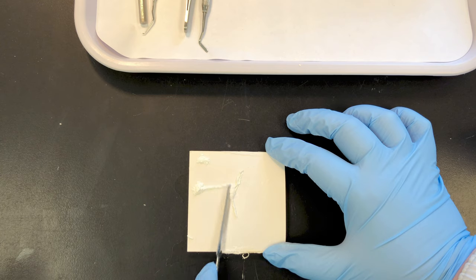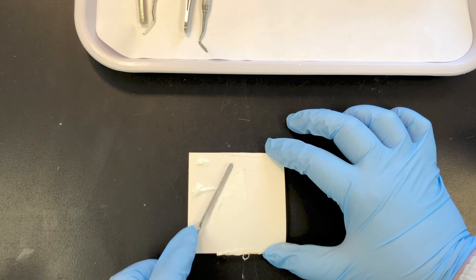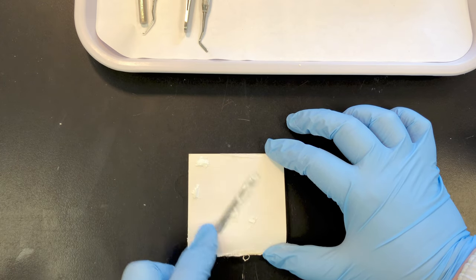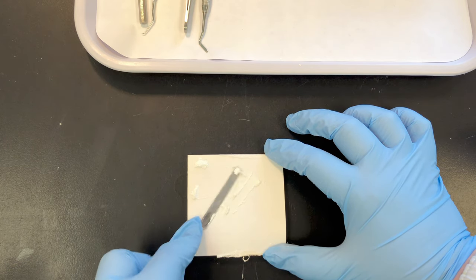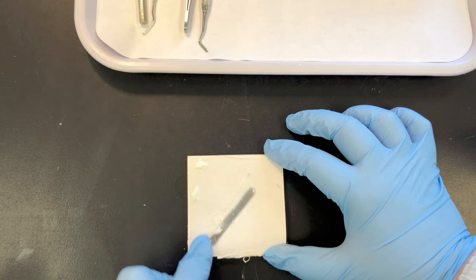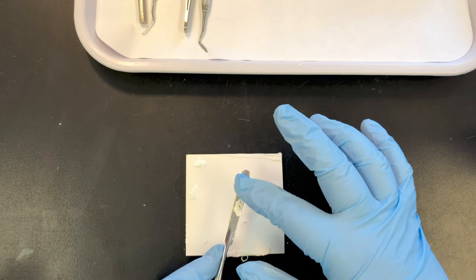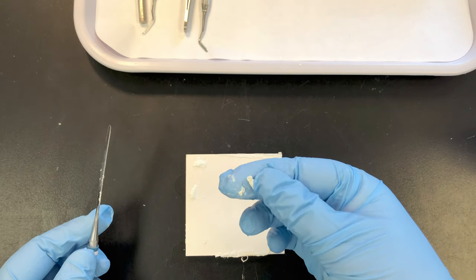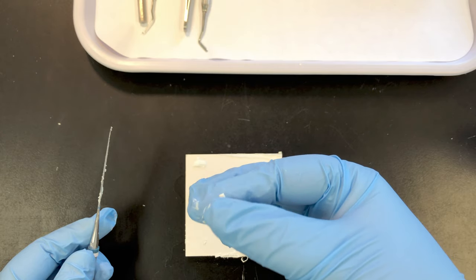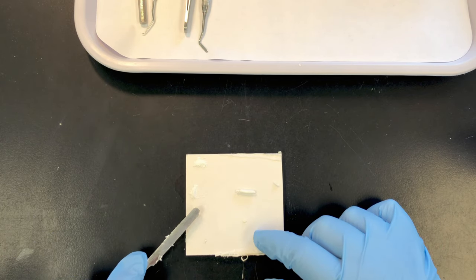Within 15 seconds, add some more and mix for another 15 seconds — really flex that spatula. Add some more. The proper consistency is quite thick; if you just do a light stirring you won't get good incorporation of the powder into the liquid. This is looking pretty good — it's not too sticky and I can roll it into a ball or a rope. I prefer a rope shape.